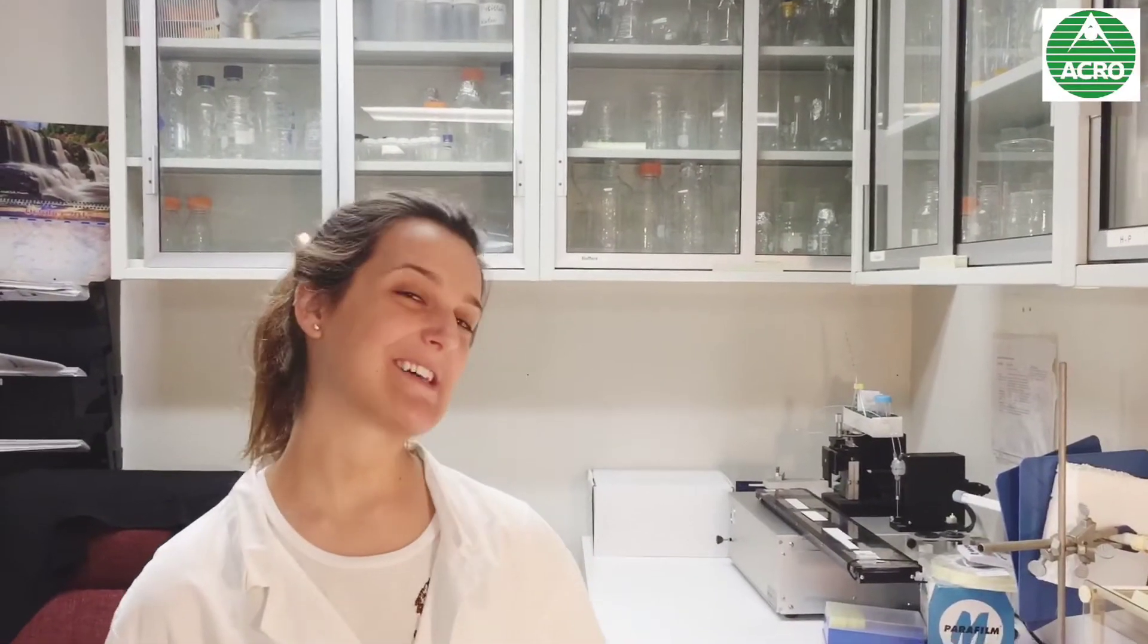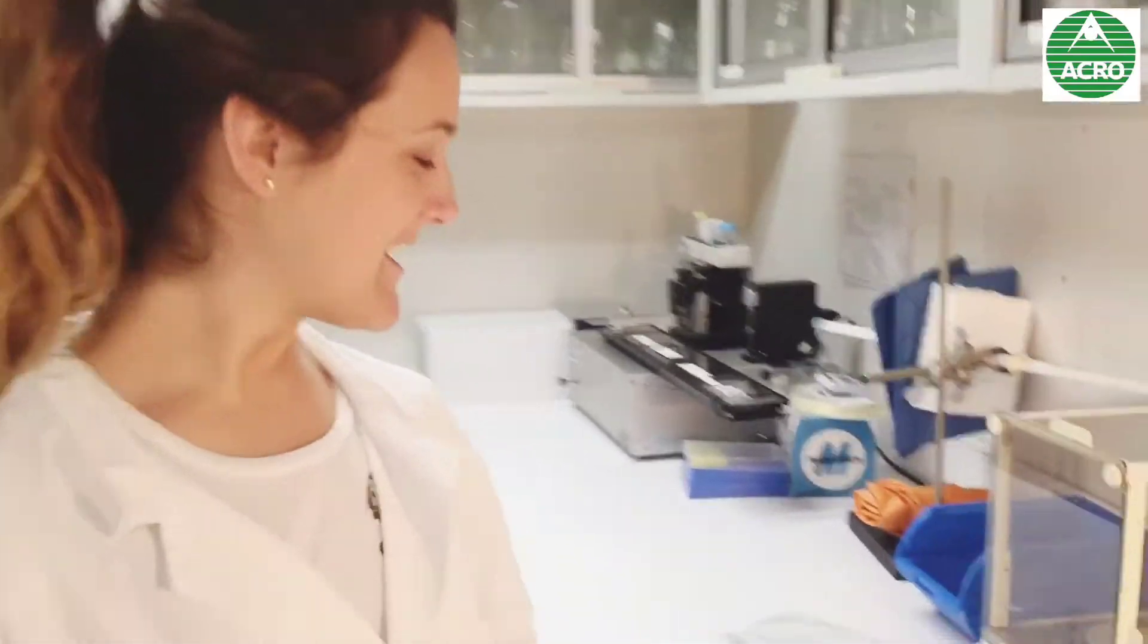Hello, this is Marina from Acrobiotech, and today we're demonstrating a rapid test panel for THC, most commonly known as weed, marijuana, kush, or grass. So let's see if this guy was high yesterday night.